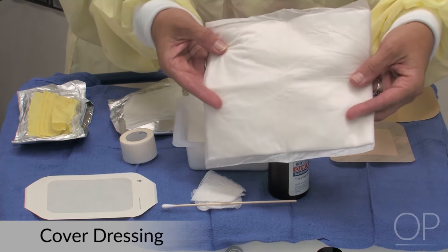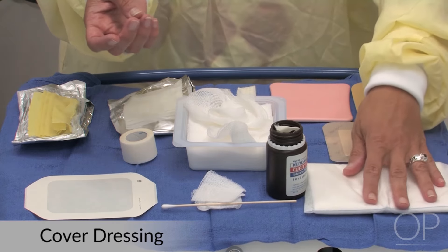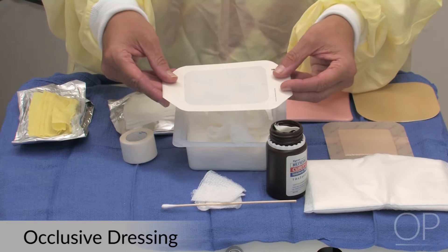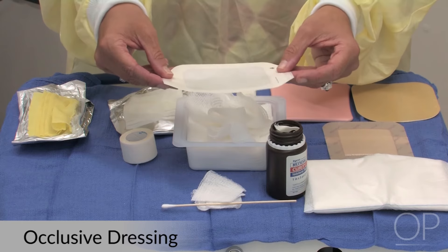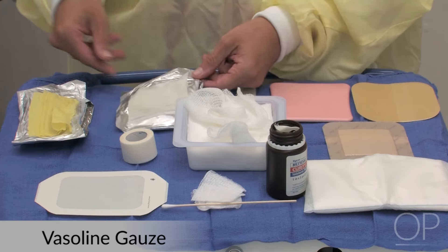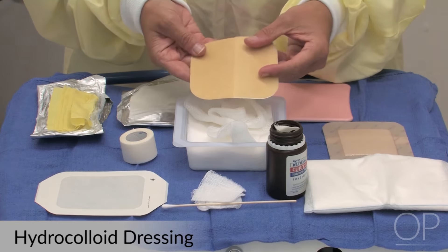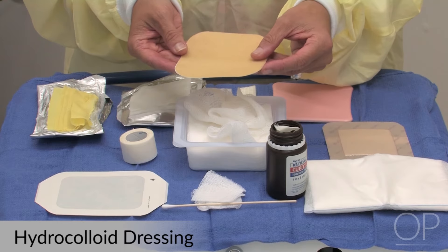There's also cover dressings, such as abdominal pads, that will absorb excess drainage that comes out over the primary dressing. There are also transparent film dressings. These are particularly good as a secondary covering dressing or to use for a Stage 1 or Stage 2 pressure injury that you just want to protect. You can use these for blisters — which would be considered a Stage 2 pressure ulcer if related to pressure — and it will help keep the blister intact. For blisters, you can also use a wet dressing such as a Vaseline gauze or Xeroform gauze, placing these over the wound to help keep them moist and protected. There are also higher-end dressings such as hydrocolloid dressings, which will absorb some moisture but are not meant for highly draining wounds — they provide protection as well as absorb some drainage.